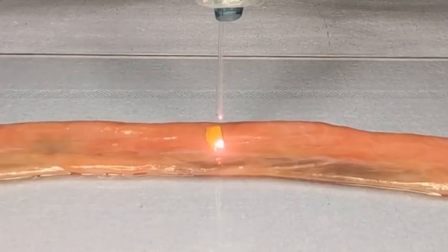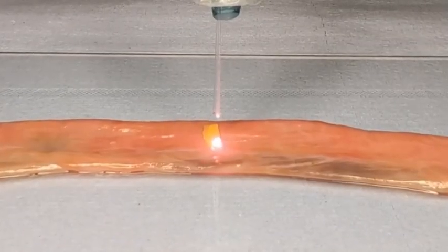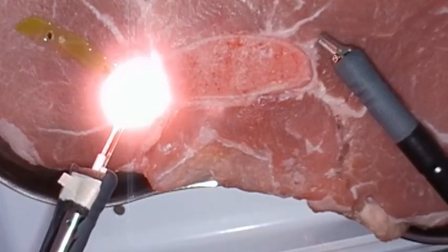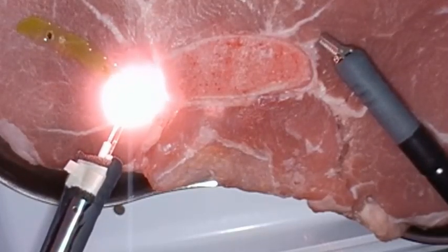This information can be used to modulate the laser power in order to achieve a constant temperature value. Moreover, by using image guiding fibers, we can get information about the temperature distribution, allowing us to have a nice and continuous temperature throughout the whole wound.